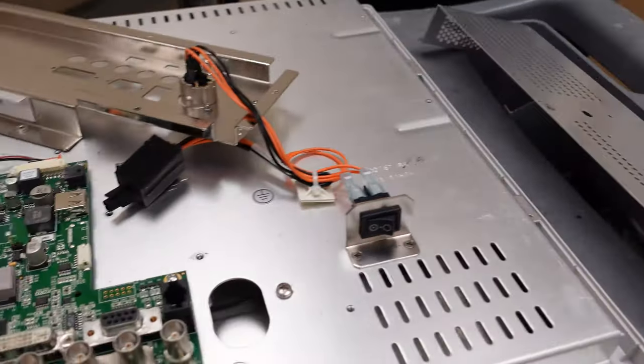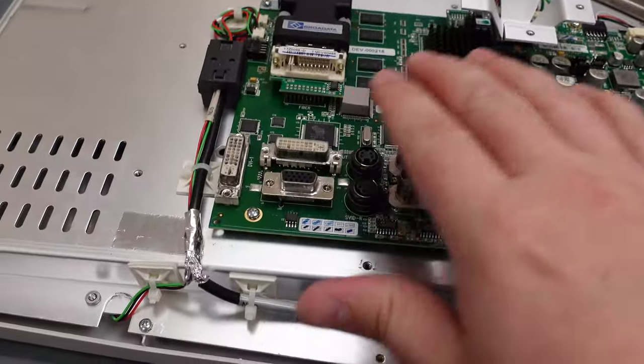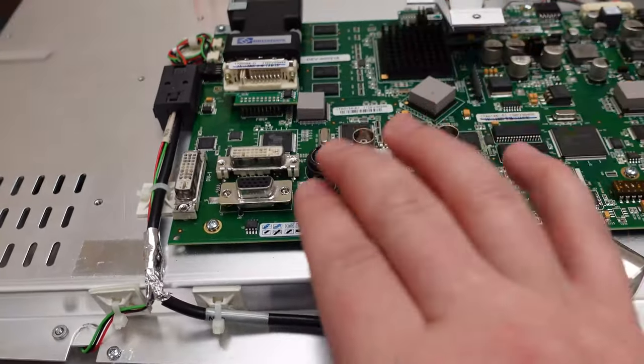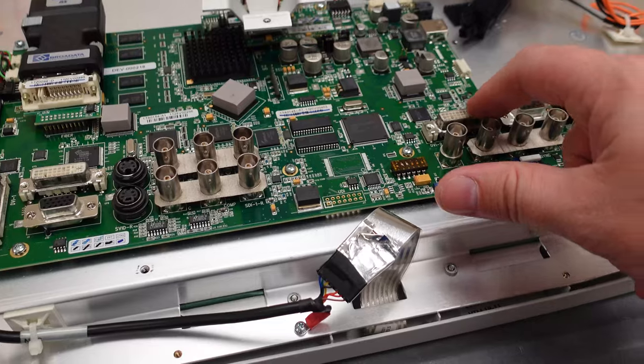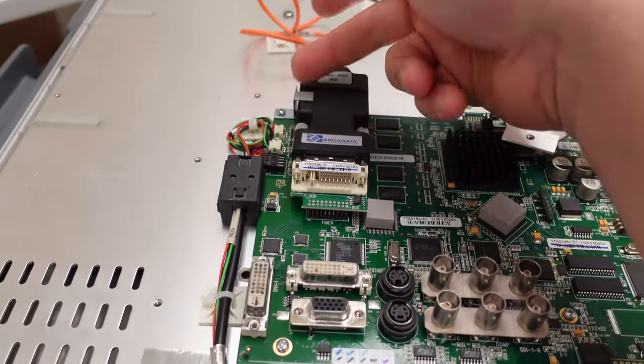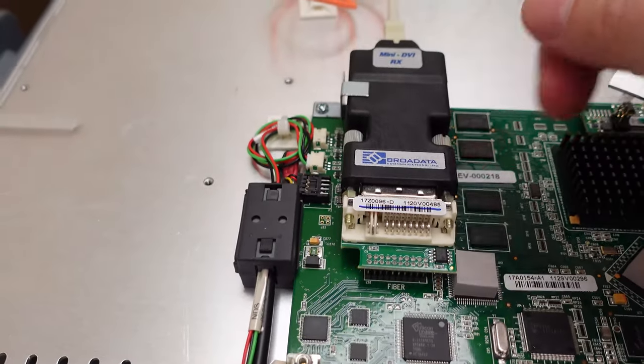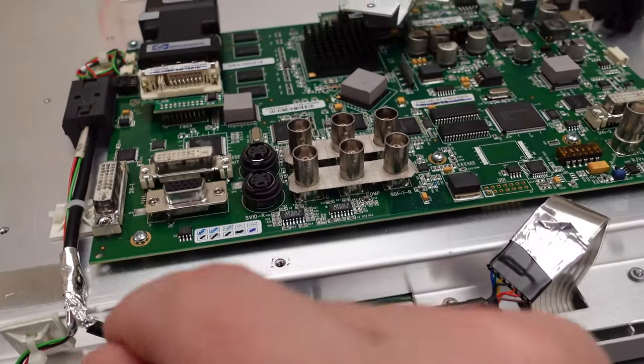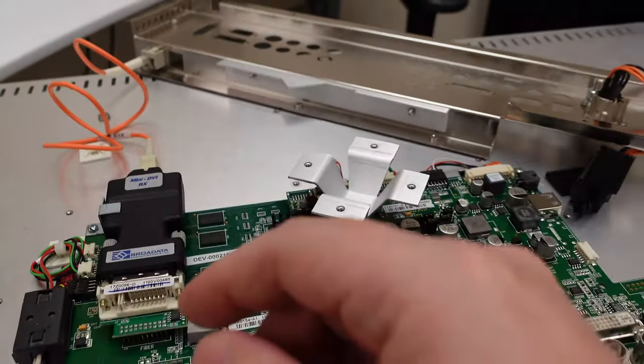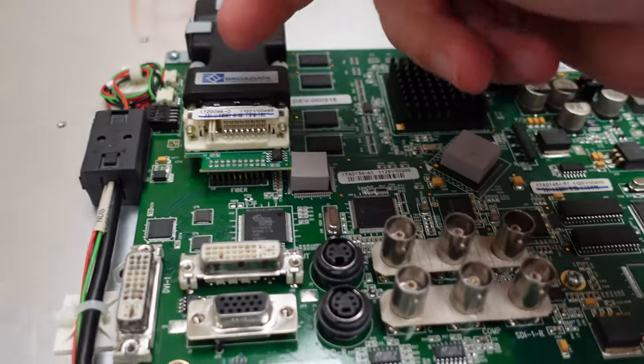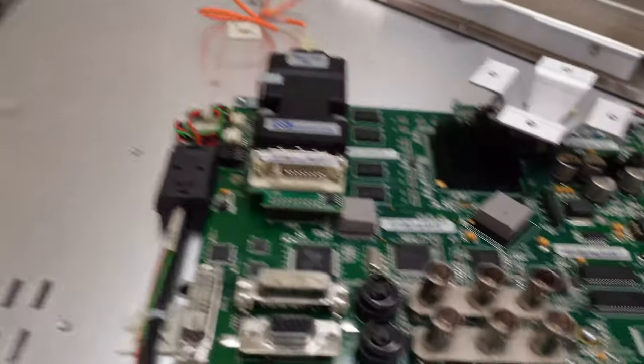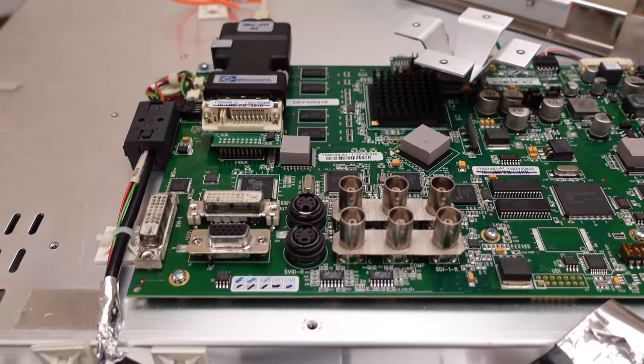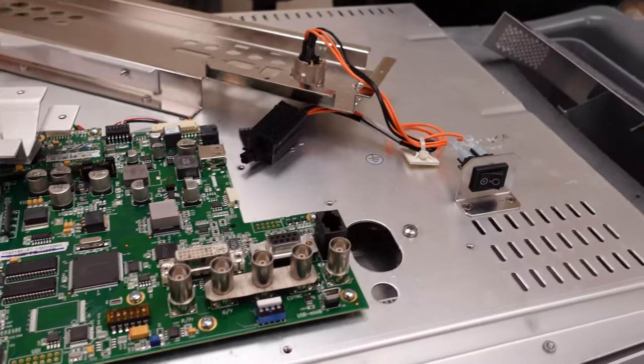This guy right here that we took off—it's a very simple board, very fixable. A lot of people think they just need to throw it out, but in fact, when you have problems with your ports, if port one's messed up, you go to port two, DVI 2. If DVI 2 is messed up, then you can disconnect this guy or use a fiber adapter. Get a TX adapter—most hospitals have them laying around. You plug in through the port that's in the front, just right there. Use a TX on the outside of this monitor and it'll come in here, or just get rid of this guy completely, connect the cable straight here, run it to the outside of your display, and you have a display that's back up and going. You have lots of options.